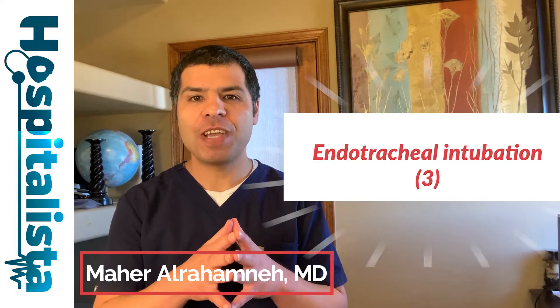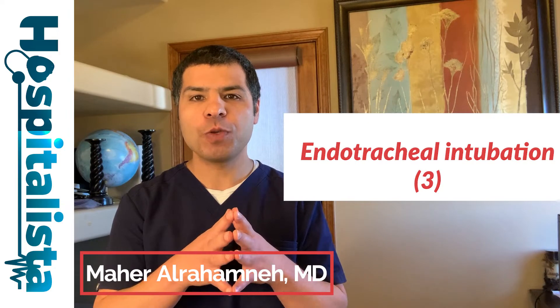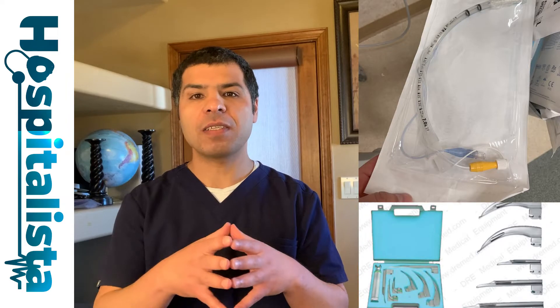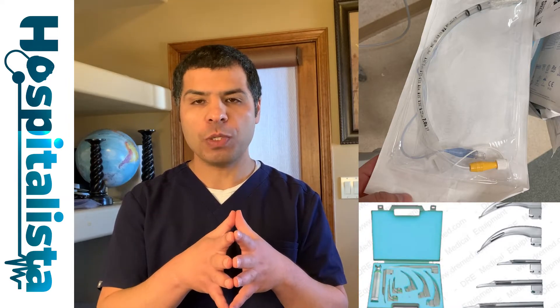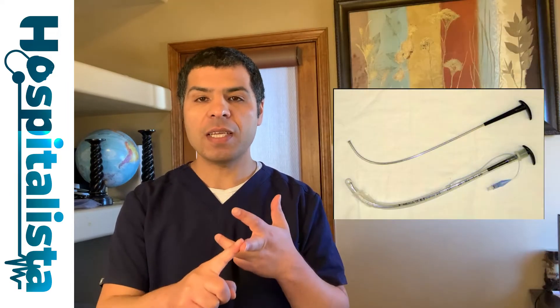Welcome to the third video of the endotracheal intubation video series. In the previous two videos we talked about the indications, contraindications, and the setup of the endotracheal intubation procedure. Now let's get familiar with some of the instruments that are essential in this procedure. Today we're going to talk about laryngoscopes and laryngoscopy, the endotracheal tube itself, and the stylets and endotracheal tube introducers.